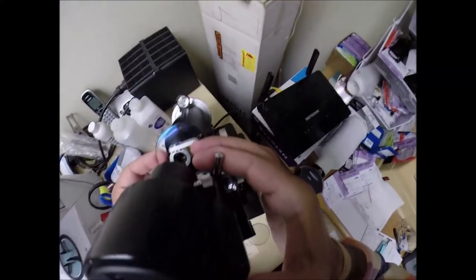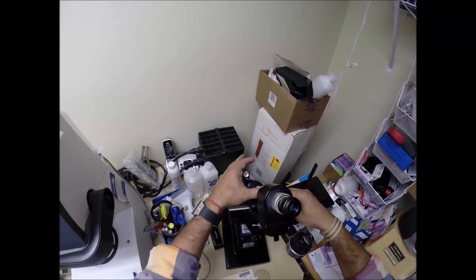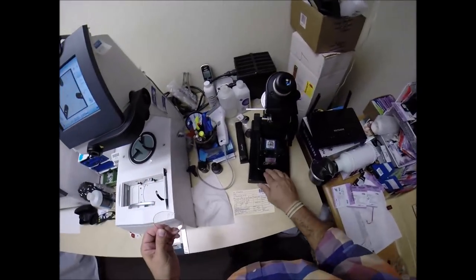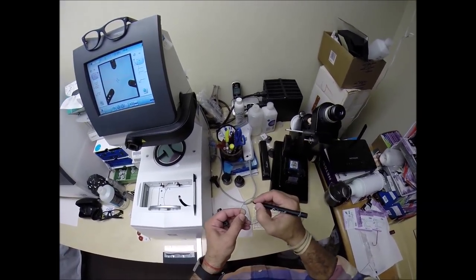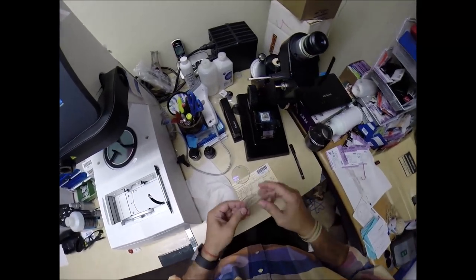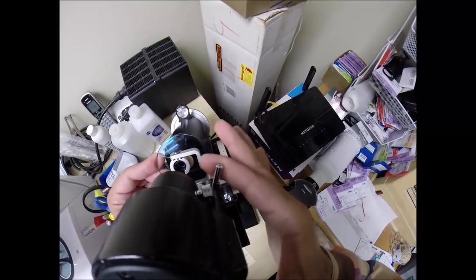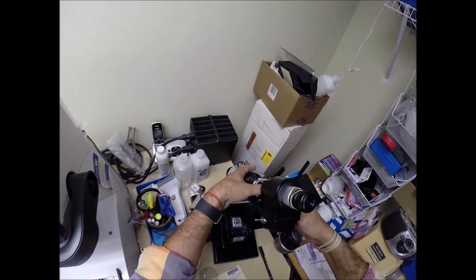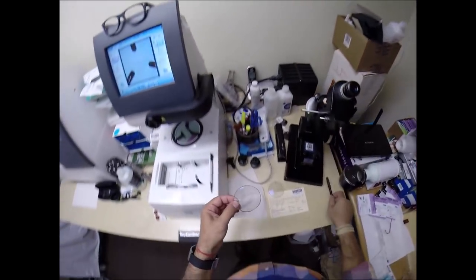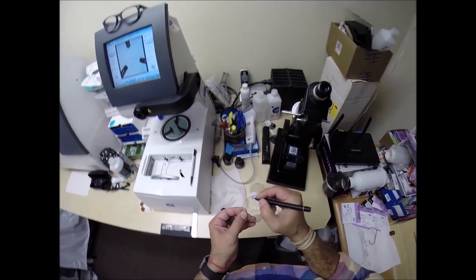There we go. The three dots worked this time. Let me darken those — uno, dos, ocho — and this is the right lens. Let's do the same thing for the left lens. Put the axis wheel on 180, the power drum goes to minus a quarter. Put it in, find the spherical component of your prescription, check your astigmatism correction — raise that up just a little bit. Put the same three dots on this one. Let me darken that one. And this is the left lens.